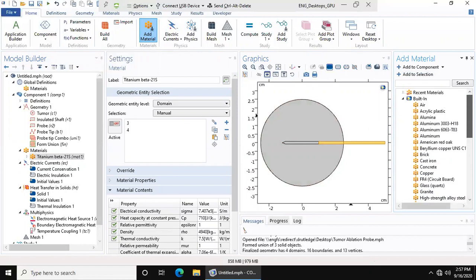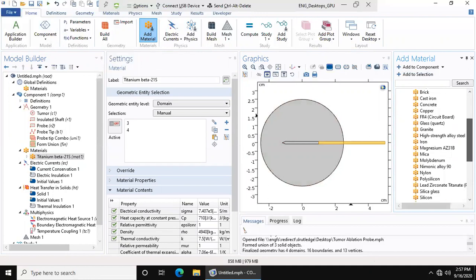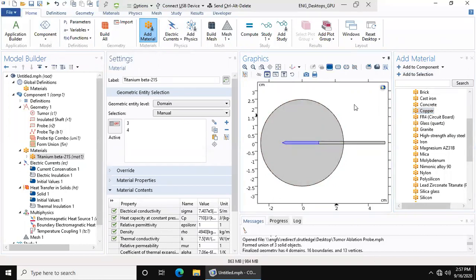Now we want to add copper. Copper is highly conductive in both heat and electricity, so we're just going to use that for our probe.